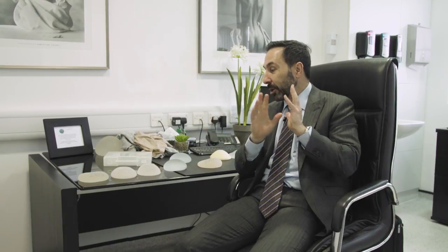Hi everybody, welcome back to my video blog. Today we're going to talk about silicone implants, but in particular we're going to talk about silicone implants in terms of their shapes and sizes and profiles.